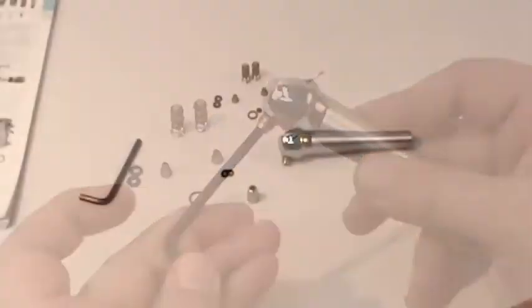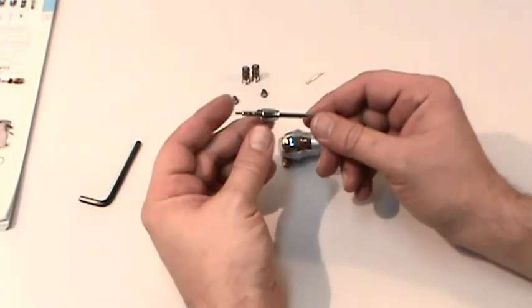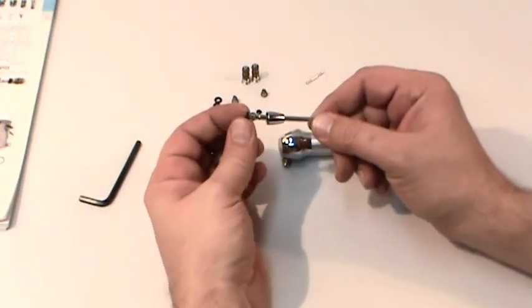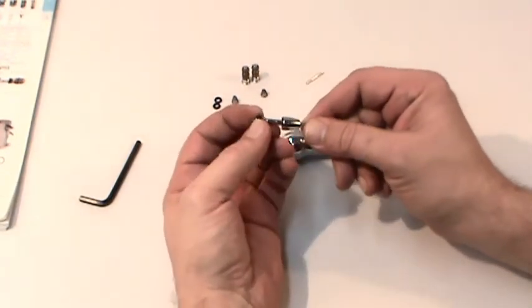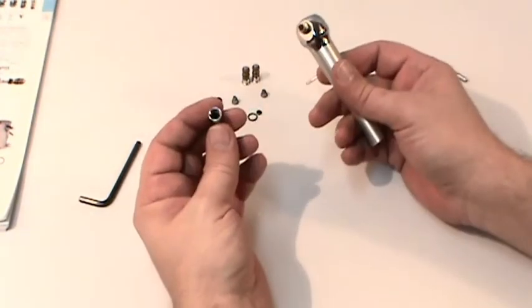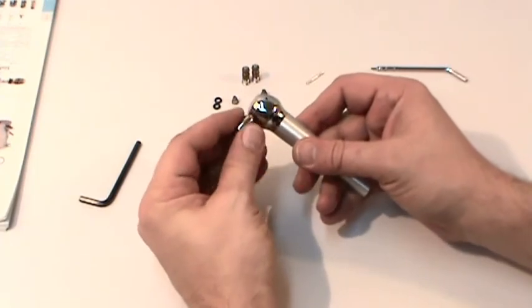The O-rings will then be replaced with the two syringe tip O-rings. A quick and easy way to seat the two syringe tip O-rings would be to slide the syringe tip through the tip nut, slide the O-rings onto the tip, and then pull out the tip to seat the O-rings. Finally, screw the tip nut back onto the adapter nut and tighten it down with your Allen wrench.